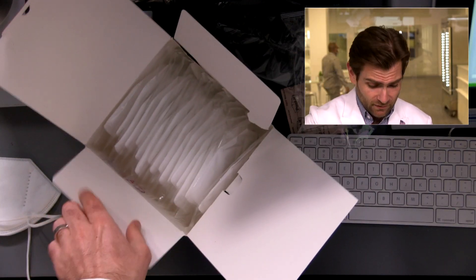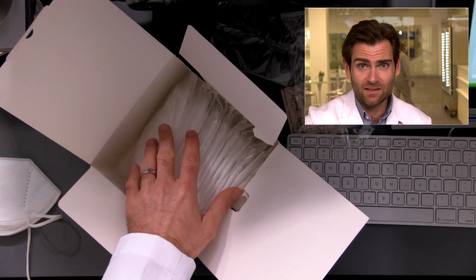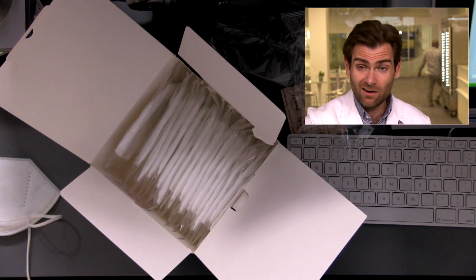All right, so I love it. Great box, great care went into putting this together. This is done by hand, not by a machine. Someone cared — somewhere, probably China — they cared. That means something, and it usually translates to good filtration, but we will see.